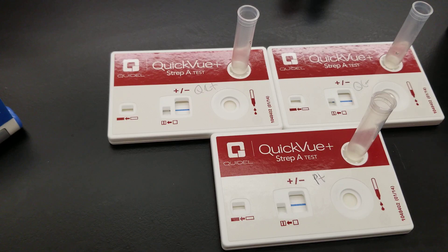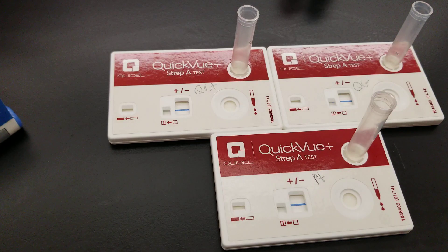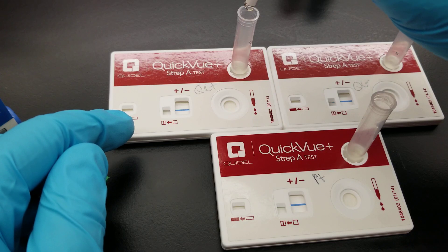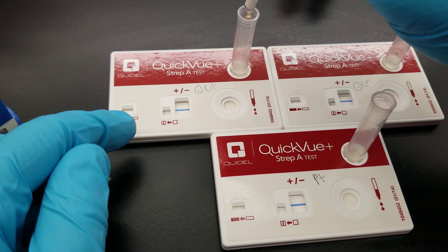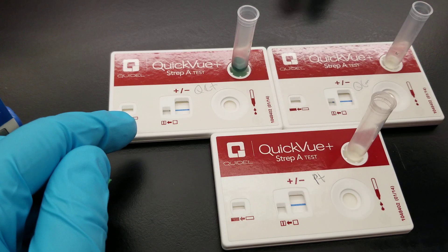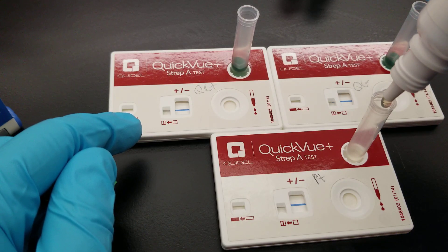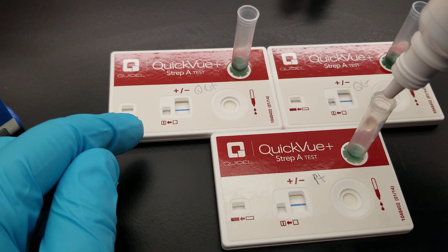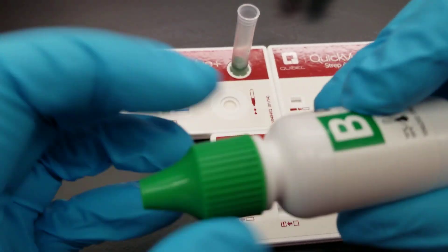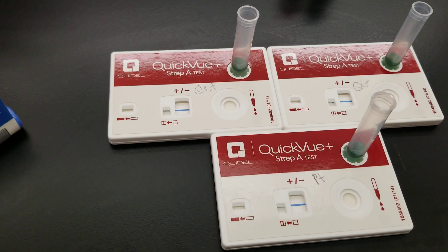We're going to follow it up with extraction reagent B. There are glass ampoules in these bottles, so when you first use the kit, you're going to need to break it open in order for it to work. This is showing the correct color upon addition of the second reagent — they even labeled it with green so you'll remember it's supposed to turn green. You cannot use it if it was green before you added it; that would make it inaccurate.